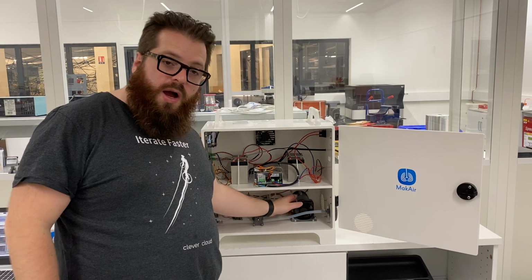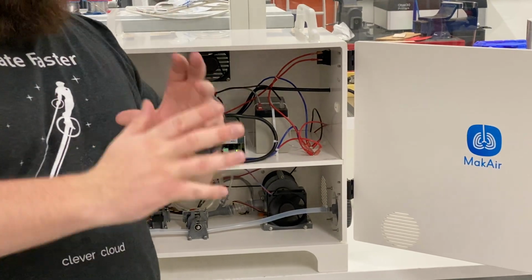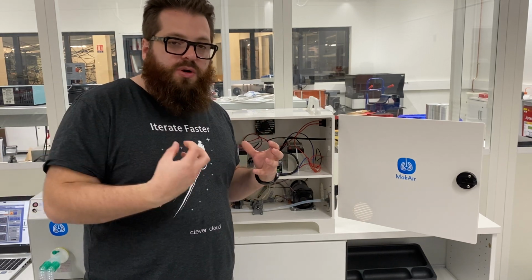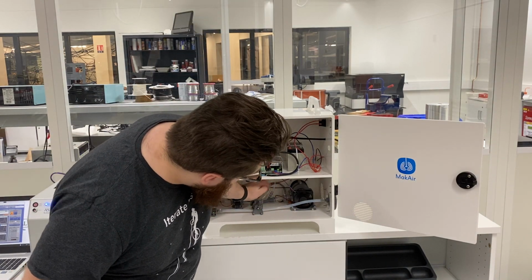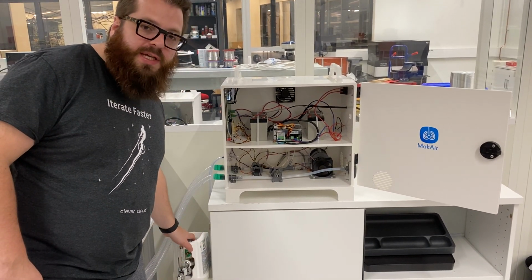So here you have what we call the blower. The blower is the part where you compress the air and put the volume of air into the pneumatic system. So you will get all the pressure and volume you need there. Then you will insert O2. So if I start this, you have some O2 on the system.